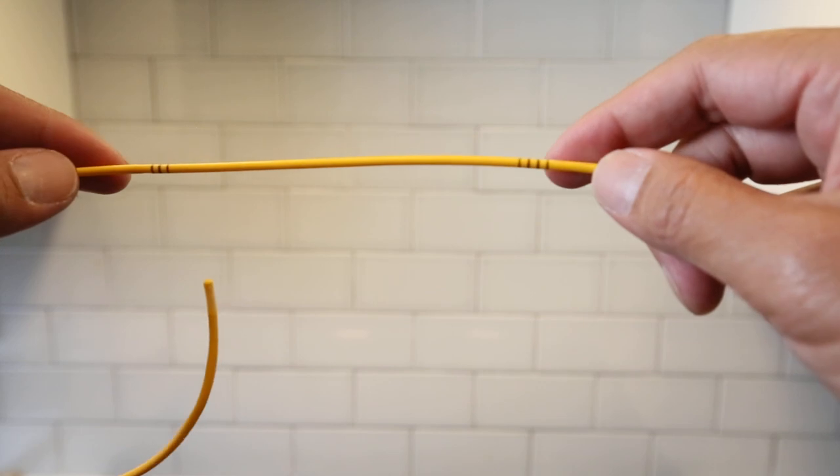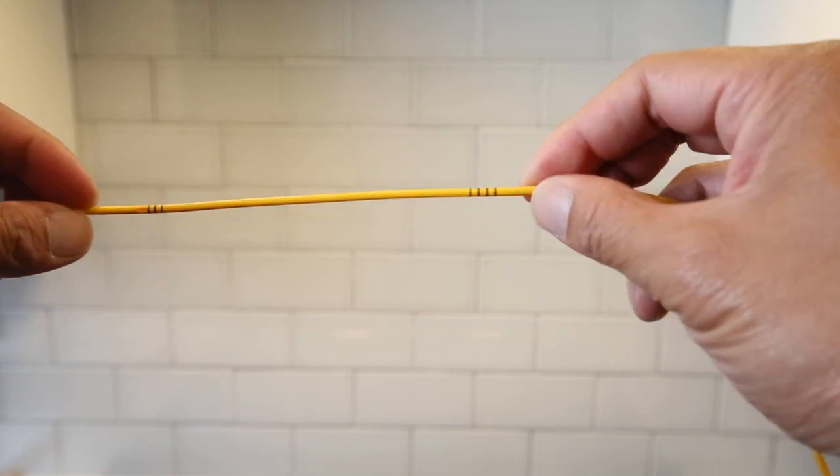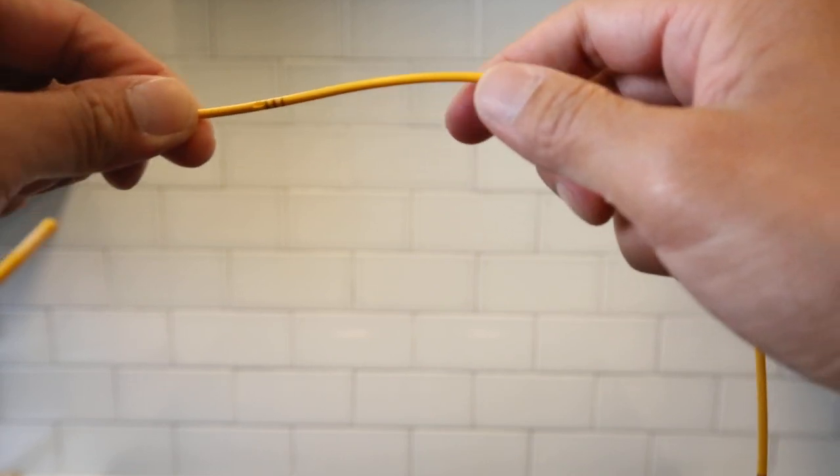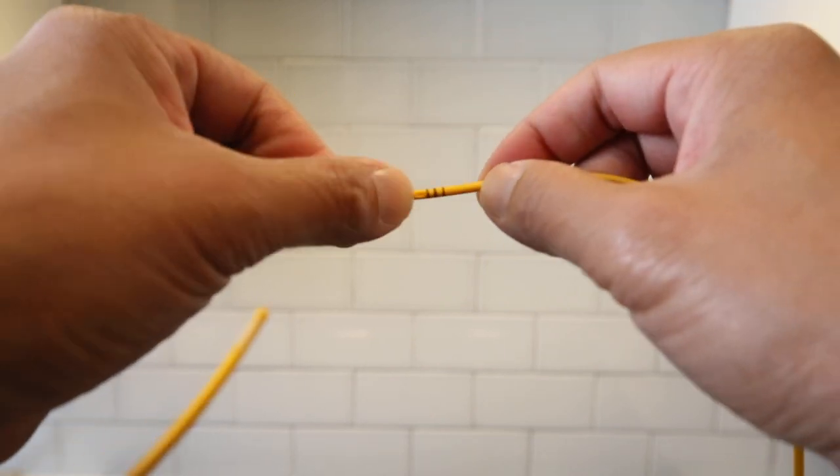And then we go back four and three. And as you can see, these are a little bit more special because you have your port right there.